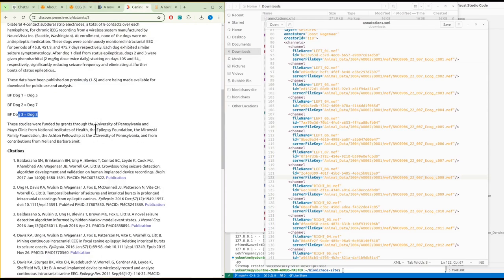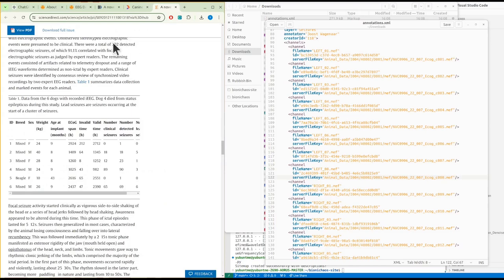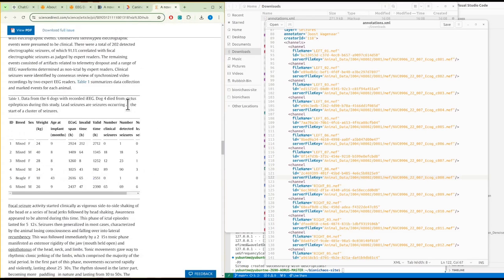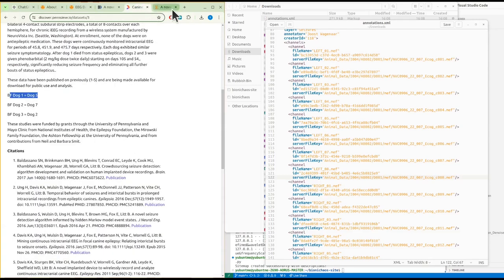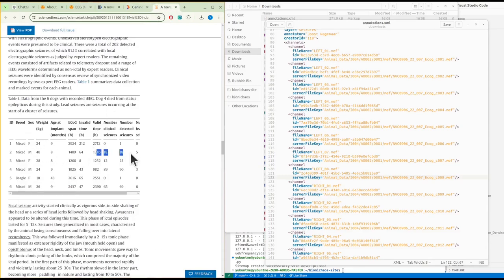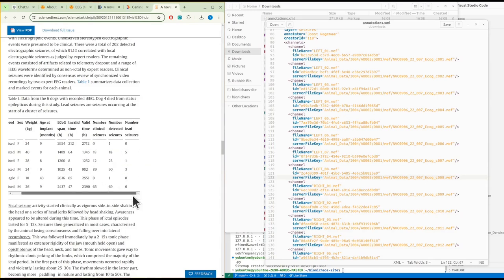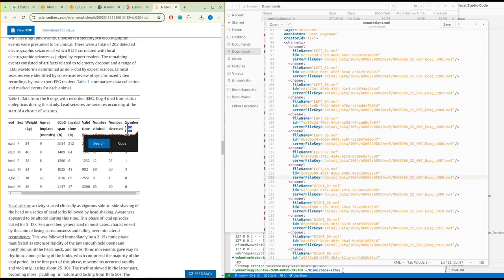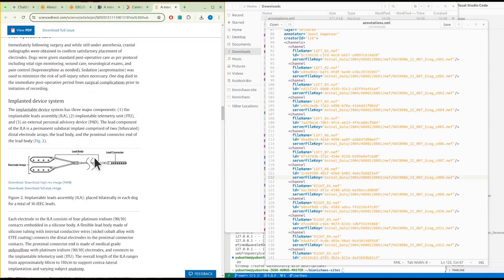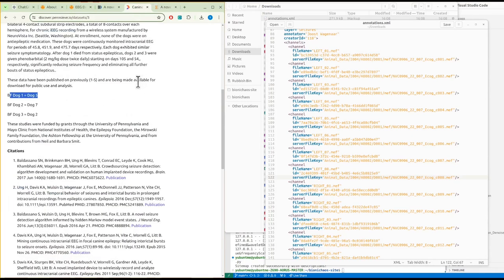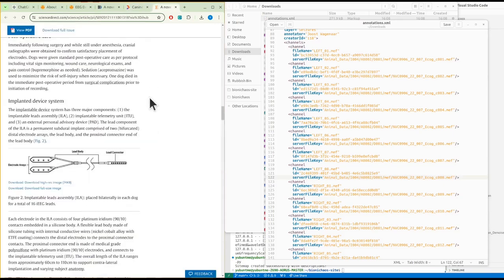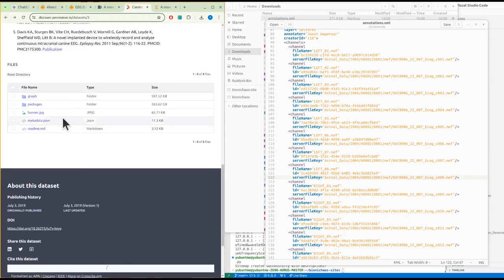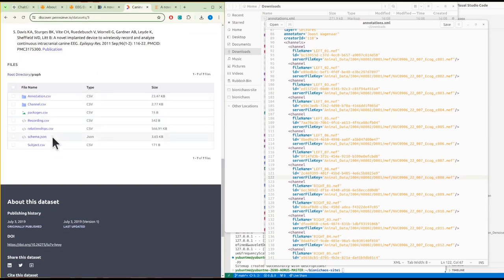Dog one is five, there's only one seizure detected. Dog two is seven, seven is not even there. The main problem is this table. There's no dog seven. We know there was seven dogs. Dog one is dog five, so is it this one or something else? Dog three is dog two, so this one has 18 seizures. We can check that. Each lead will be eight electrodes. There's not even a viewer for anything, metadata and graphs.